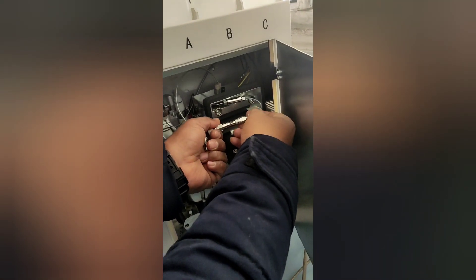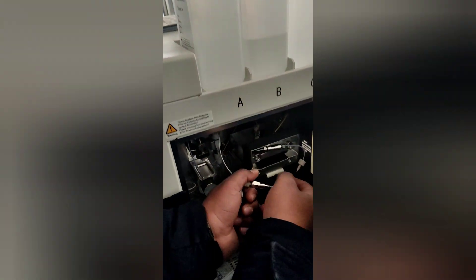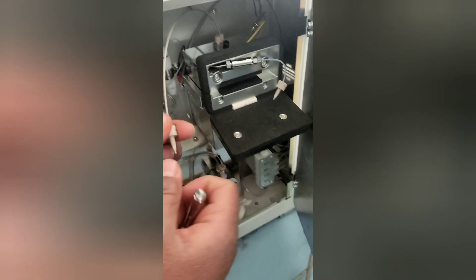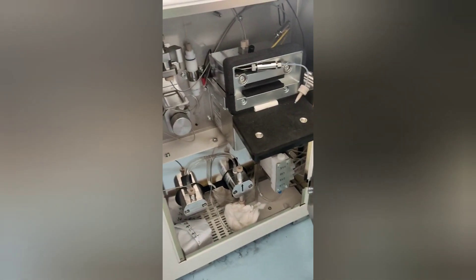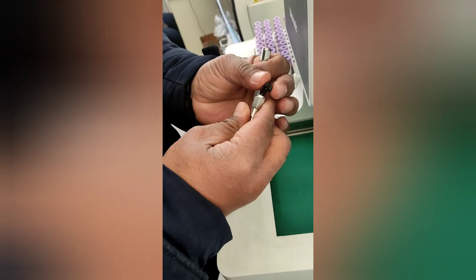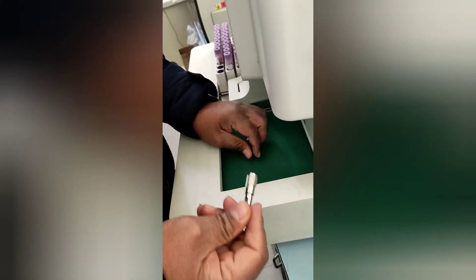Start unscrewing it from the right side first. Take out the black screw cap from the new column and fix it accordingly by carefully watching the direction of the arrow.